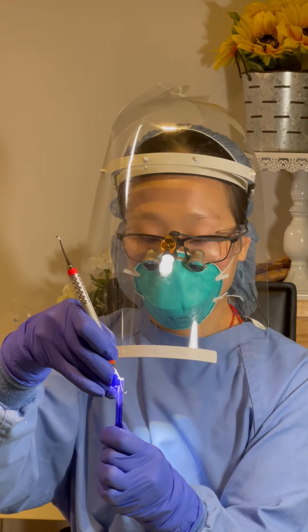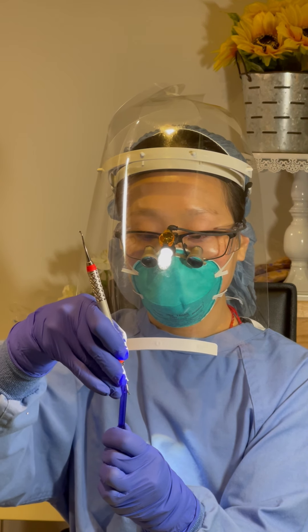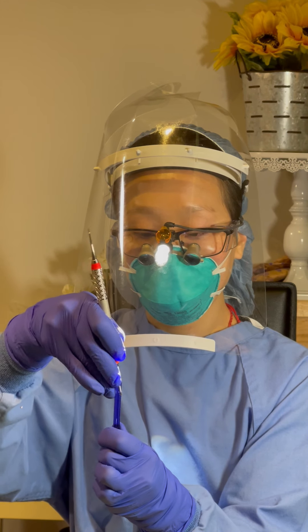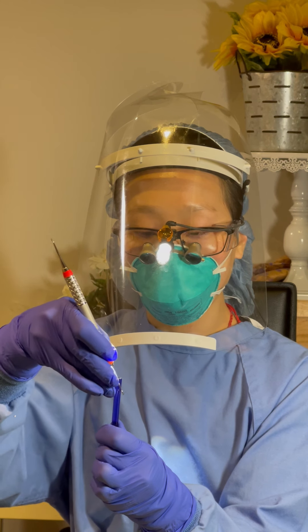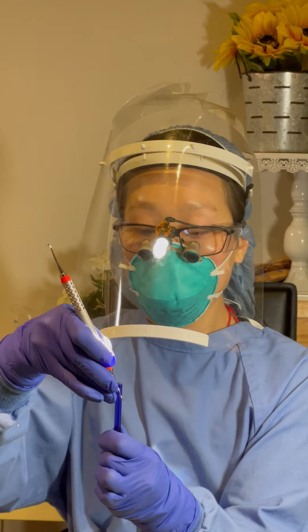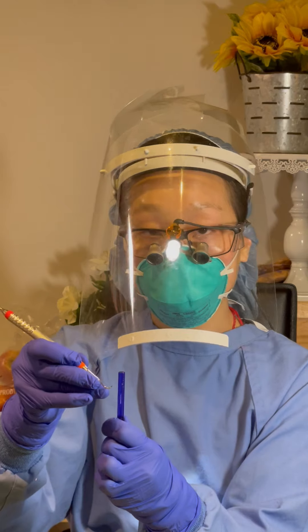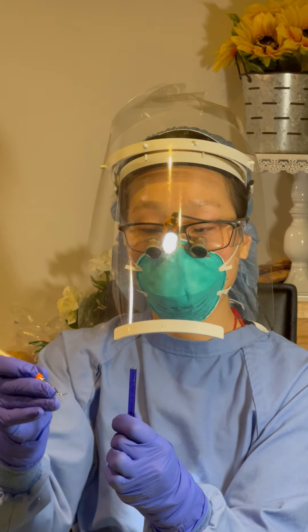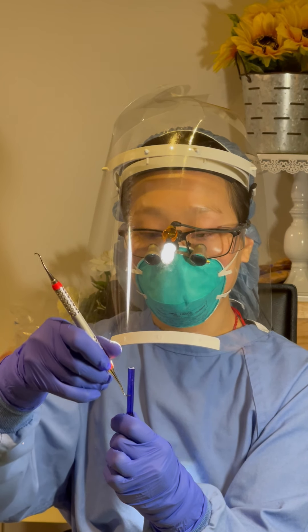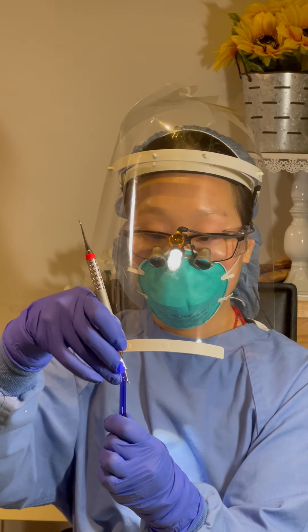I will apply some pressure onto the lateral side of the test stick and then release it, testing all the thirds. The sharp instrument will bite onto the stick and when released will produce a metallic ping sound. However, the dull instrument will glide along the stick. So now I have already tested this side of the blade.